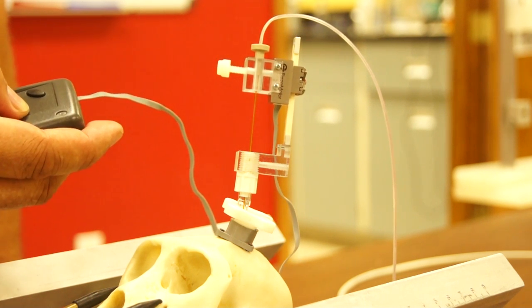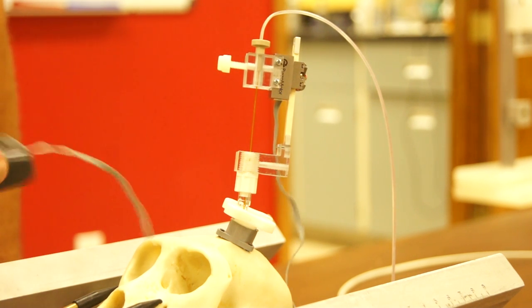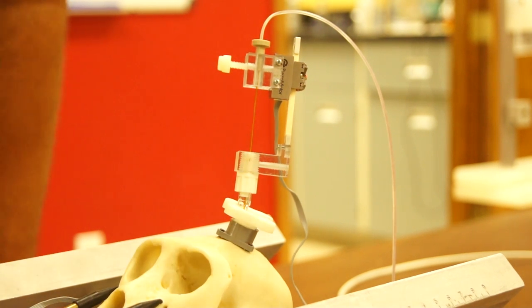The piezoelectric motor is non-magnetic, MR safe, and it's going to be available in store soon.